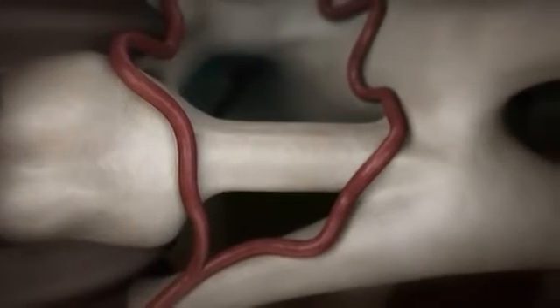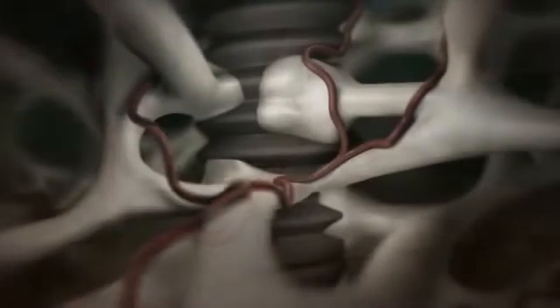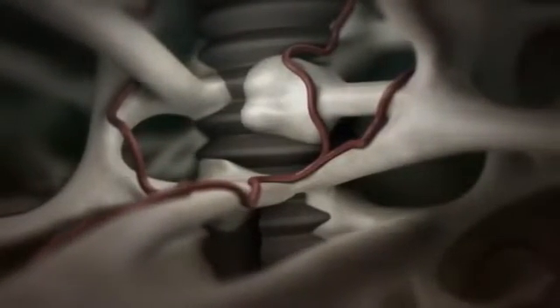Osseointegration — a highly complex biodynamic process of cell-to-cell communication — is completed.